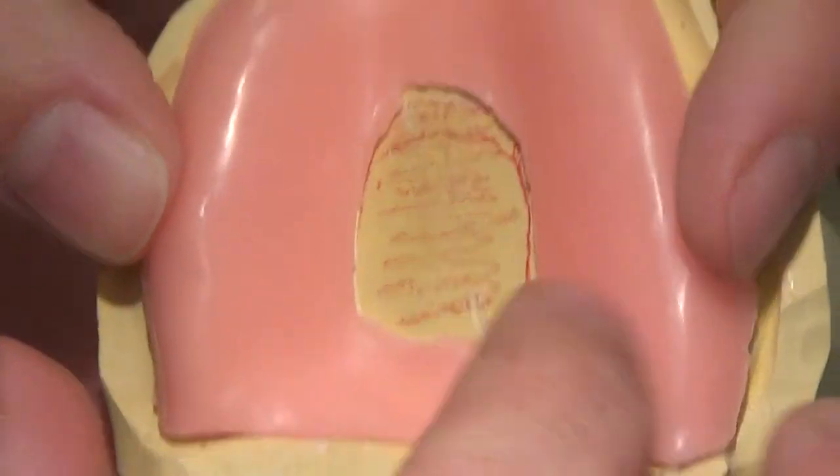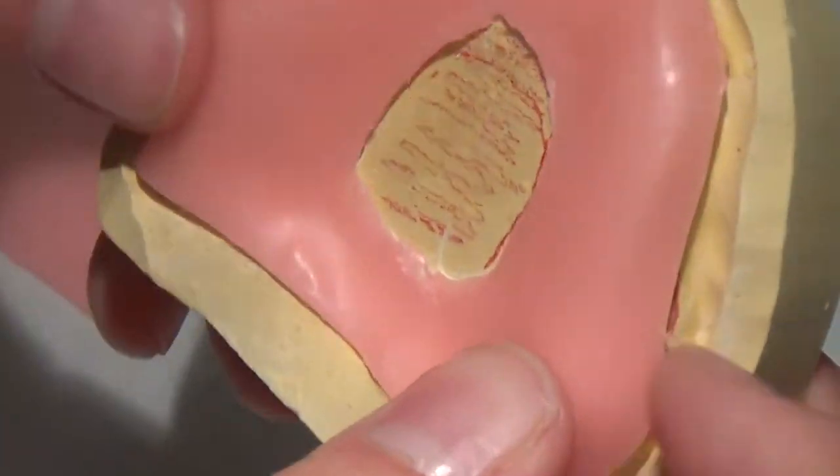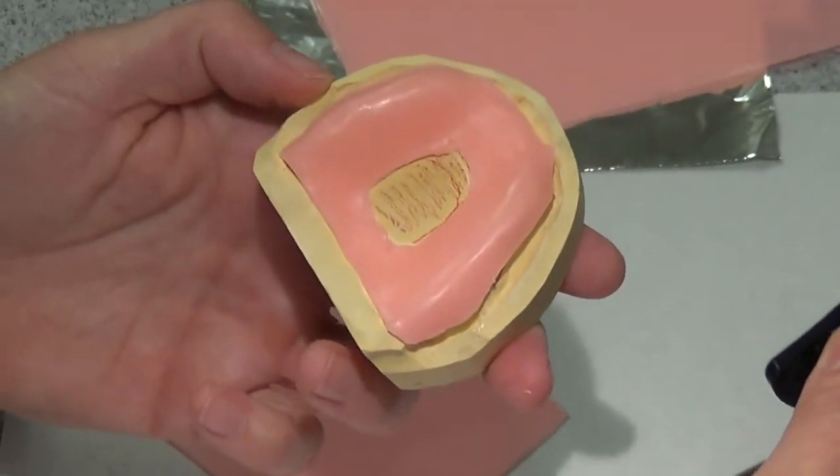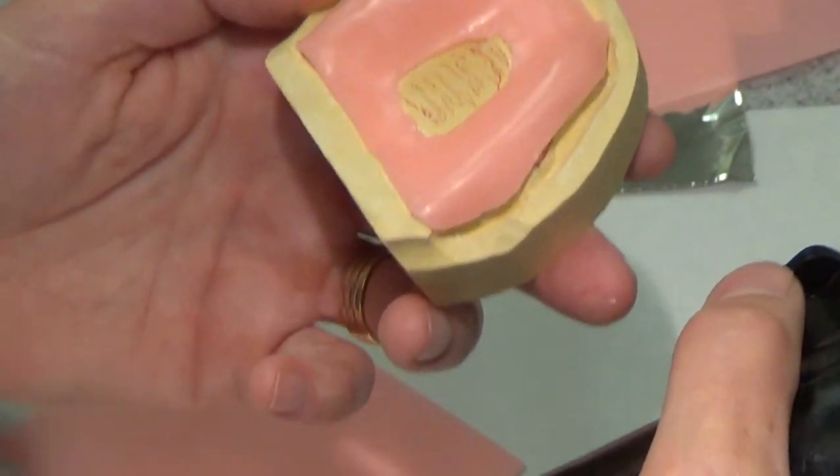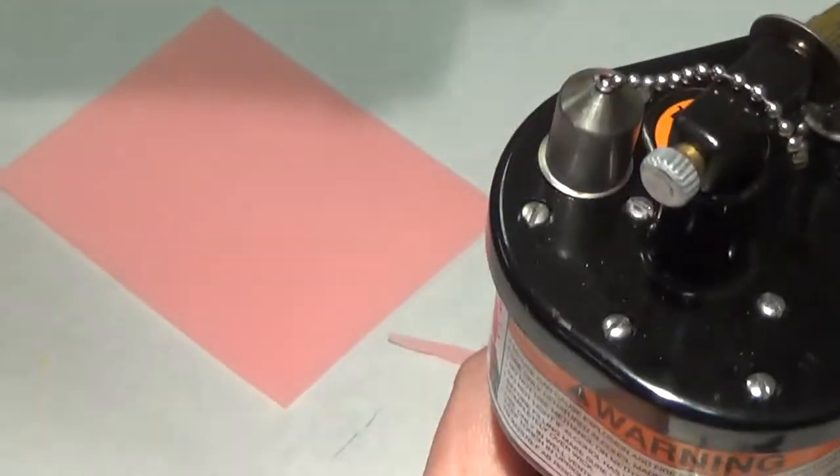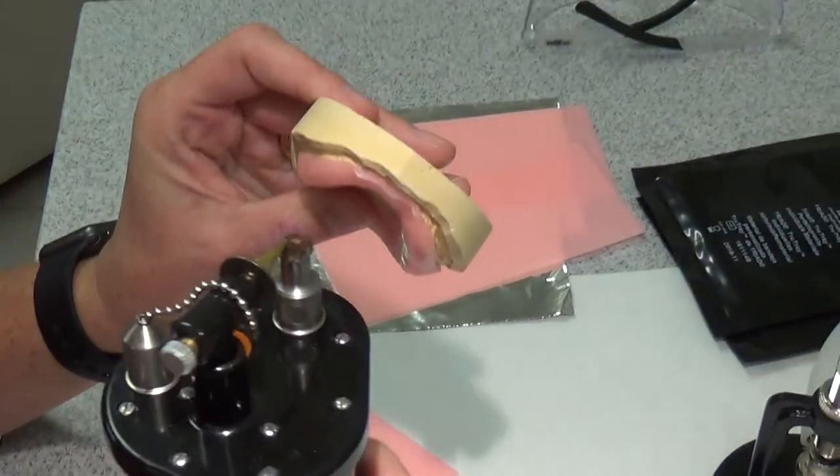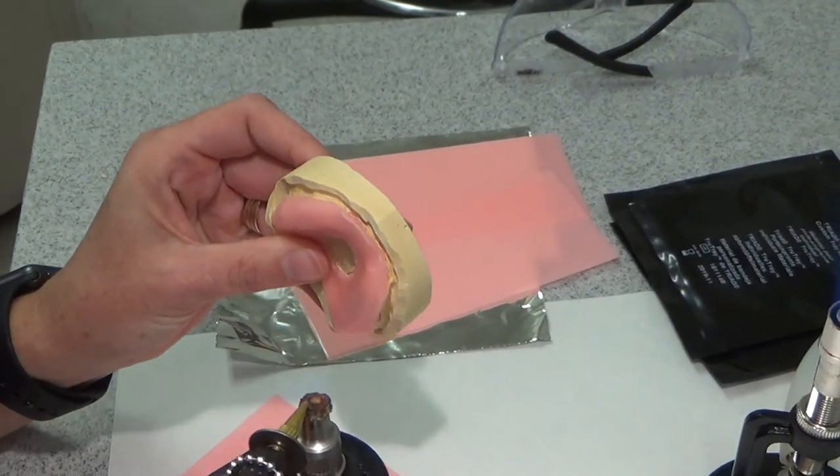So I'm going to do a stop something like that. Doesn't have to be perfectly symmetrical or gorgeous or anything like that. It just needs to be functional. So I'm going to heat up my torch here just because I don't like how this area isn't as well adapted and it's rough. I'm going to come back and I'm going to smooth this point.